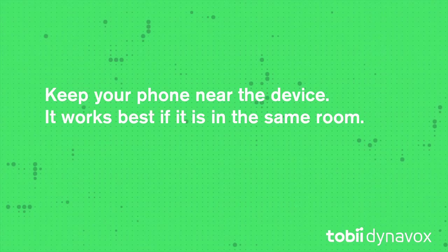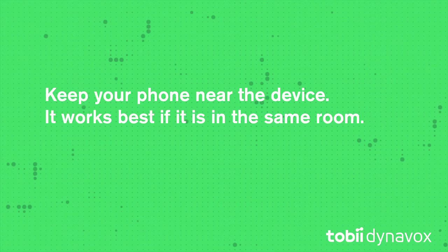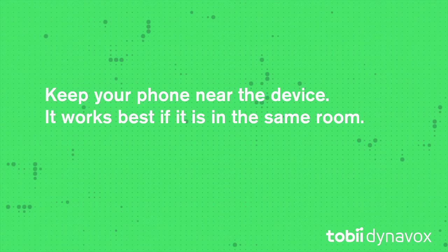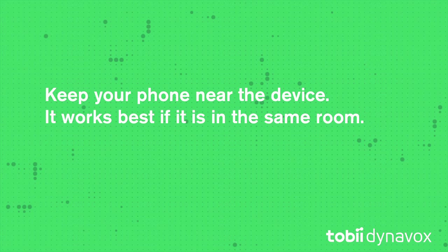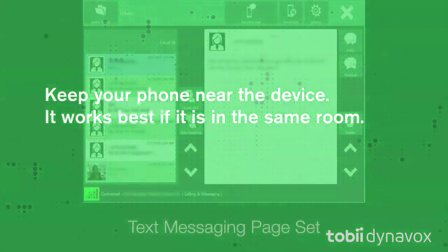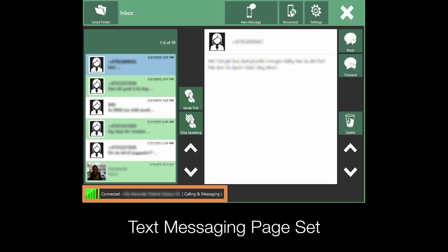You can see in the Status area whether you are connected or not. You will now have access to all of the text messages that are on your phone. You can write messages and receive messages from your device. Connection status will be visible on the phone or text page set or in the status bar.